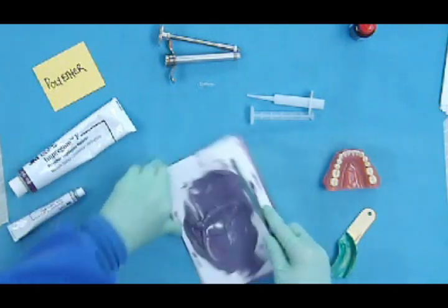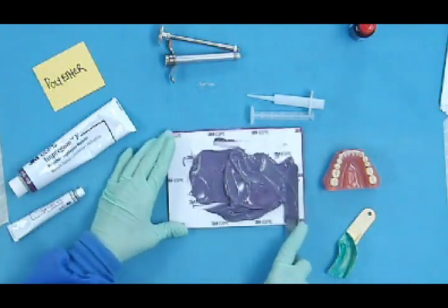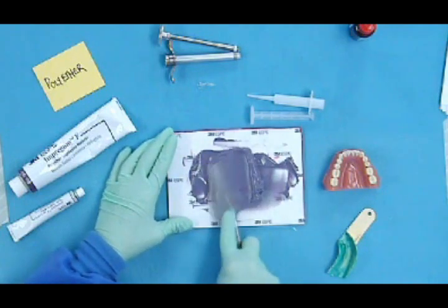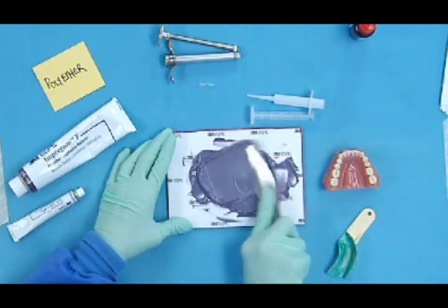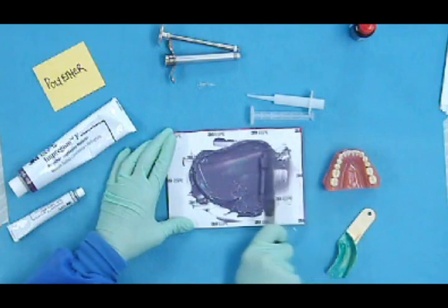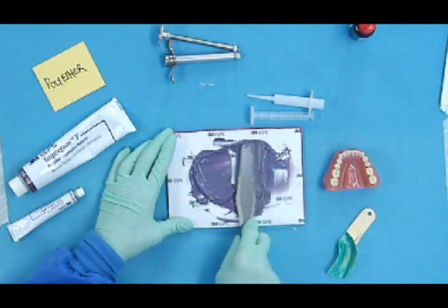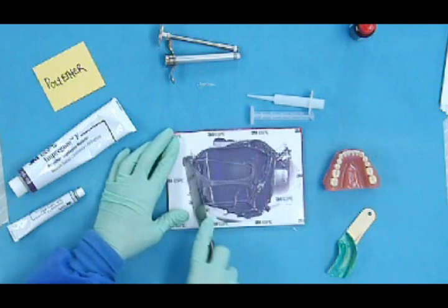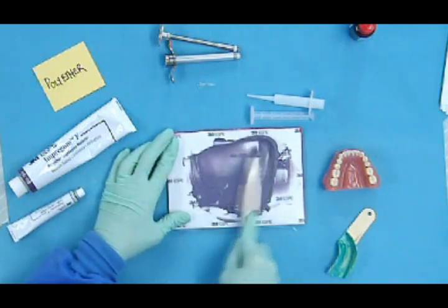Turn this around so you can hold the loose end of the tablet, the pad. To get it off the spatula, you just kind of back the spatula up and then continue to mix.